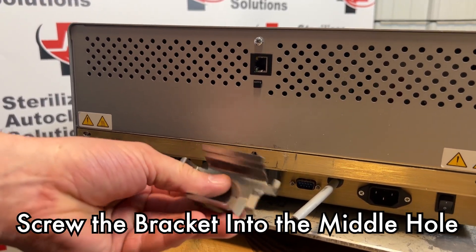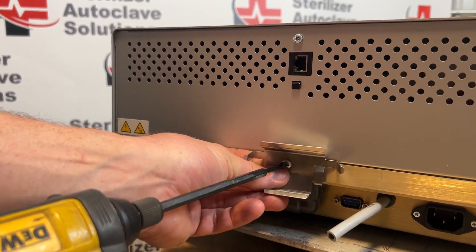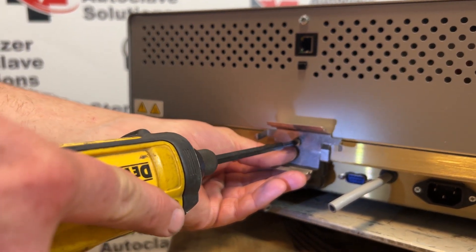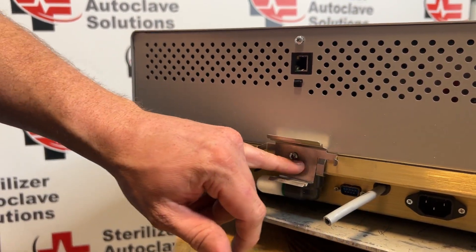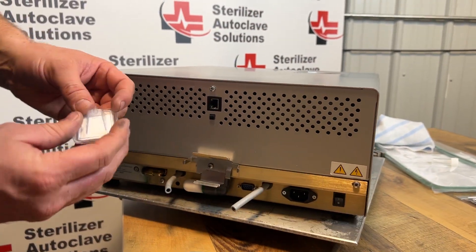I'm going to start with our biofilter bracket with the screw in the middle. You might have to maneuver the cover from one side to the other, but there is no play in that — there is play on the sides. We are going to change our biofilter.